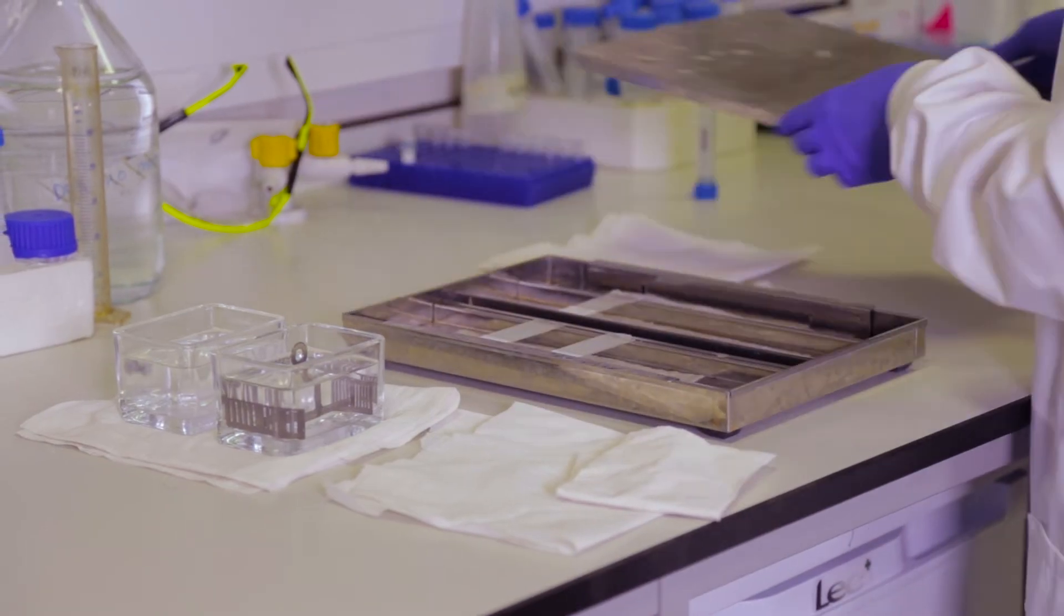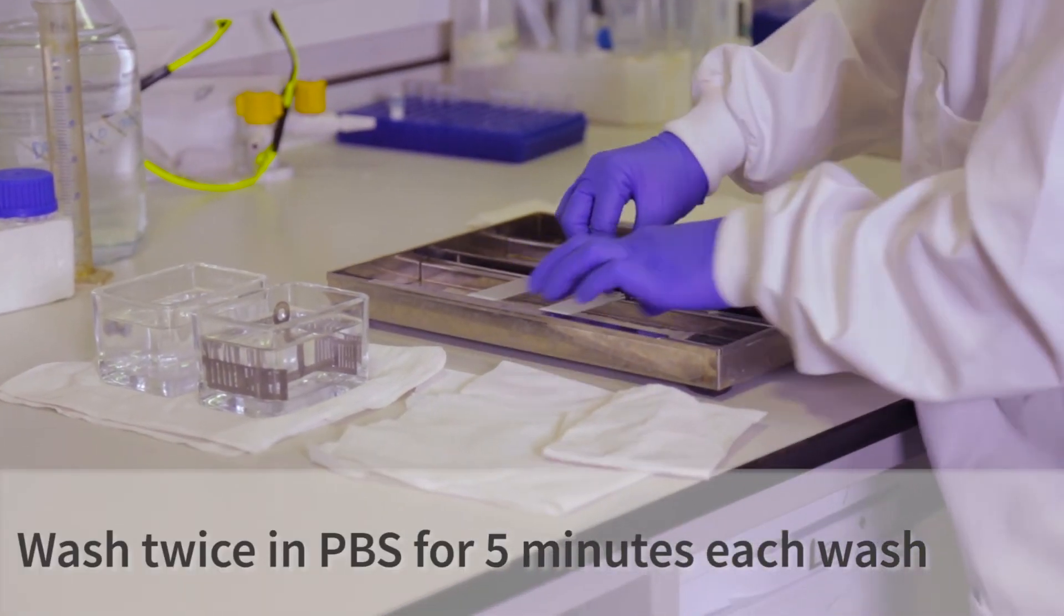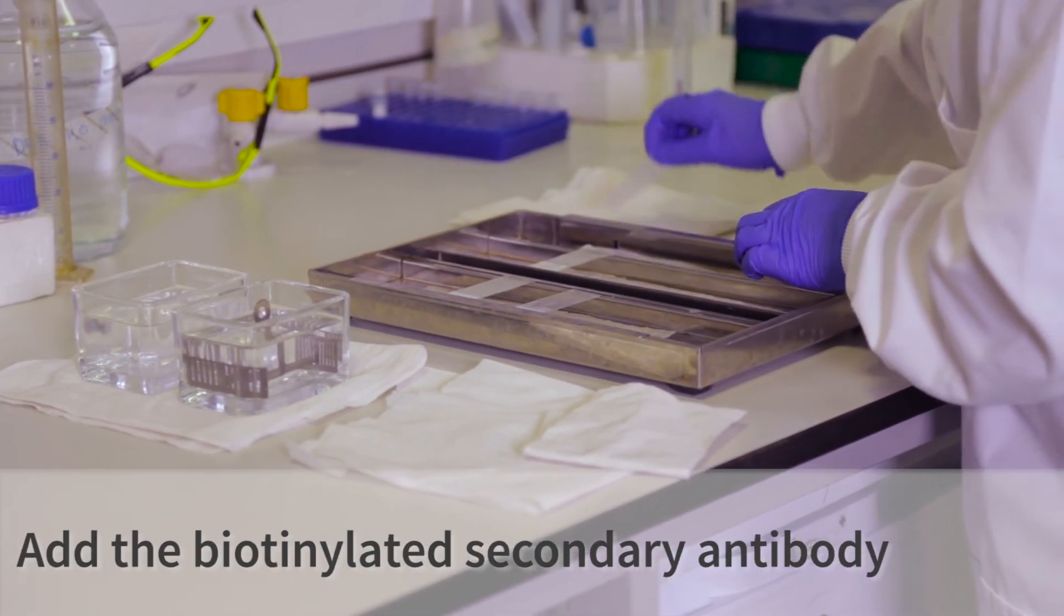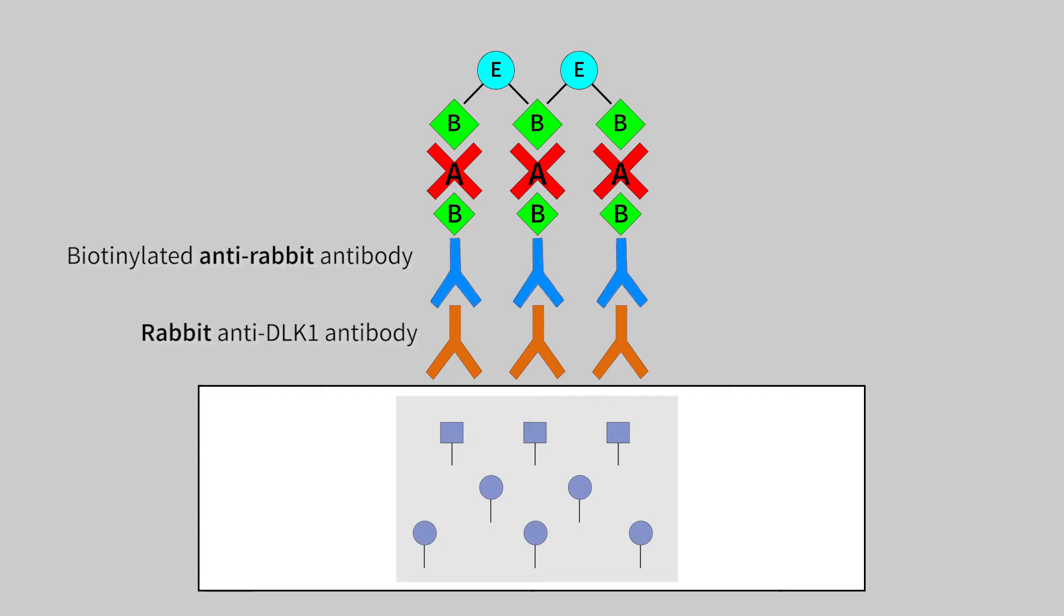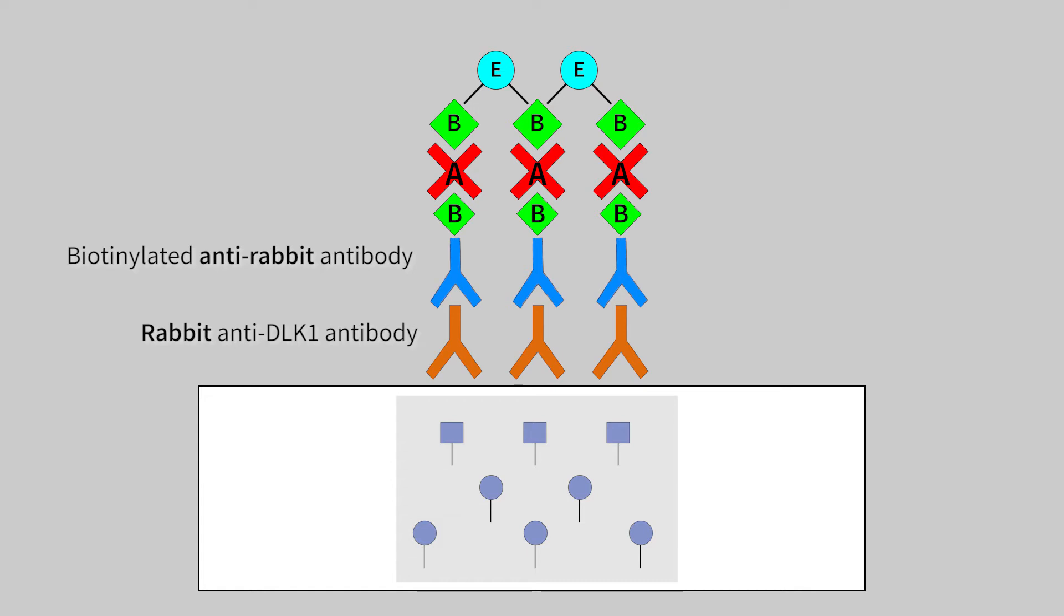After the primary antibody has incubated overnight, we wash the slides and then add the biotinylated secondary antibody. You must match the species of your secondary antibody to the primary antibody.